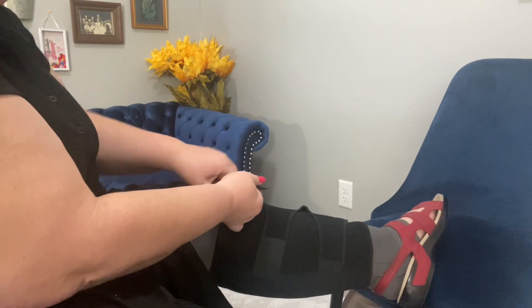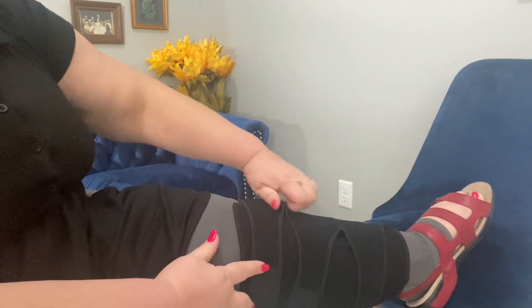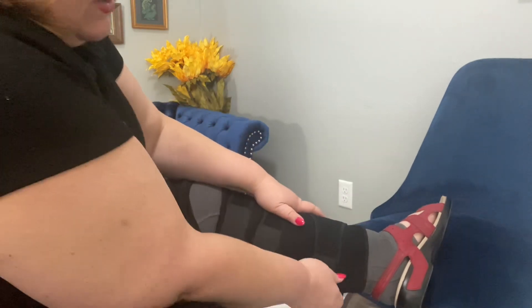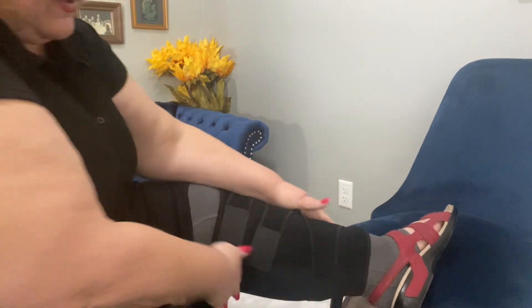You have to pull it a little bit tight to get the support where you want it, which is nice because you can adjust it. The newer design looks like it might pinch a little right there, but at least there aren't those holes of doom I talked about before where swelling could actually escape — so that's much better. I'll pull that one a little tighter and show you what it looks like on my leg. And that is the new and improved Beltwell wrap.